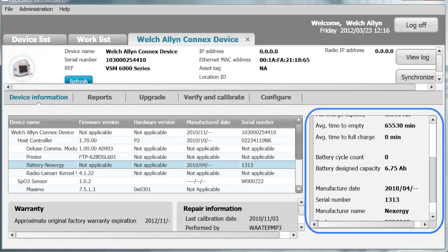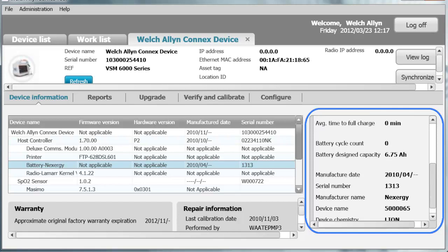The battery is at 100%, so it is zero minutes to full charge. This device has not performed any deep discharges. It only performs a deep discharge once it hits 30% or lower on the remaining capacity. The design capacity is 6.75 amp-hours. It was manufactured in April of 2010. The battery serial number, the manufacturer name, the device name, and the device chemistry are also shown.